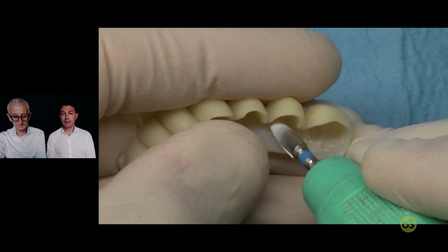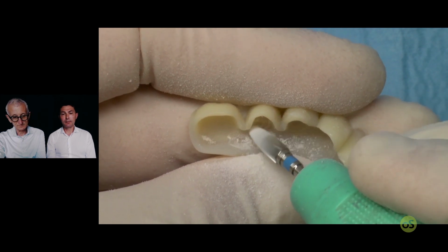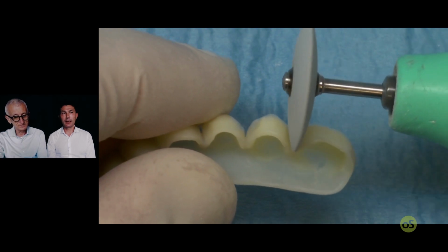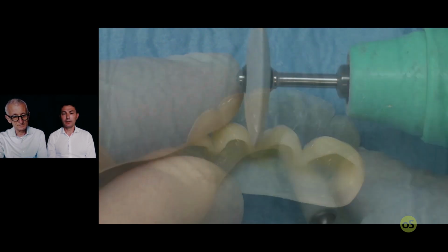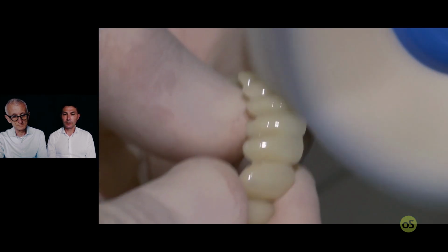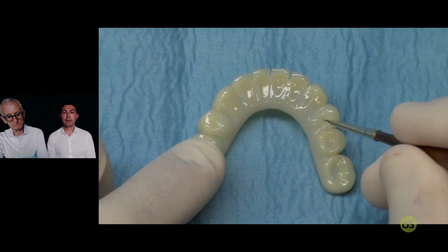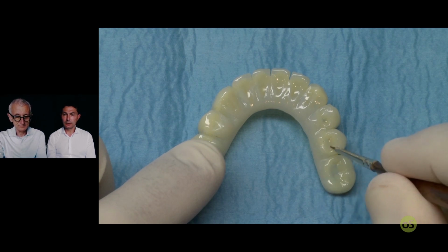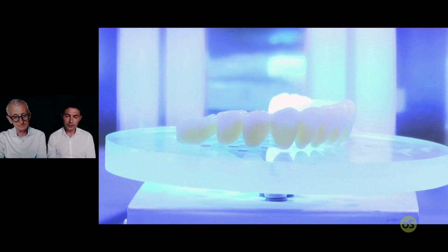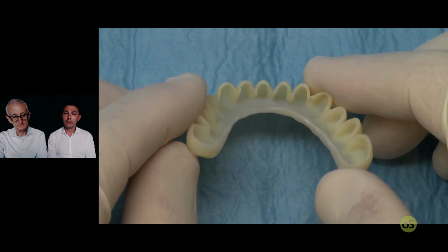And now it's time to increase the internal empty space, and increase the abrasion. Again, some rubber, and start to polish the restoration. It's very easy to polish mechanically, and if you want, place some color, some stain in the sulcus, in the lingual surface, because for us the lingual and buccal, the occlusal and the buccal surface are the final surface for this restoration.